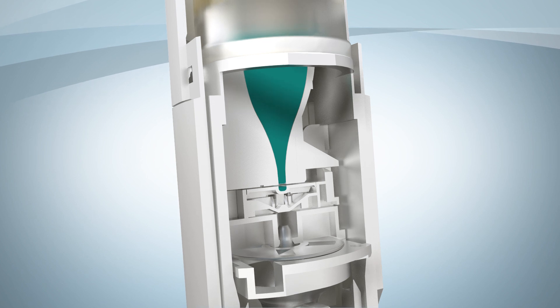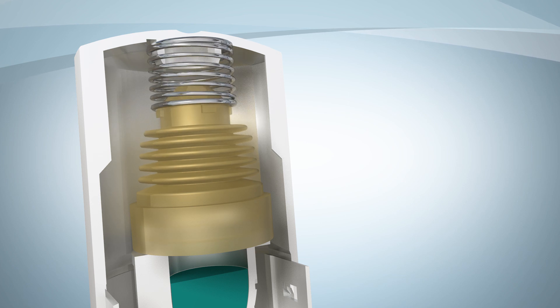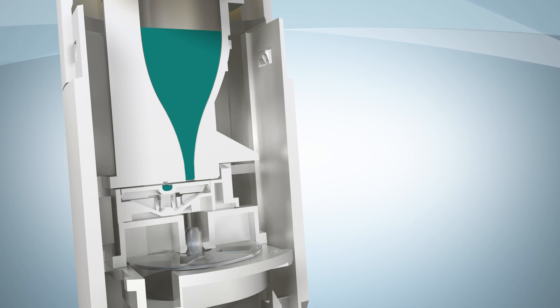Here's what's going on inside. Each time the red cap is opened, the top spring expands. This forces a dose of medicine into the dose cup below. Then the dose cup automatically shifts over and is ready for the next step.